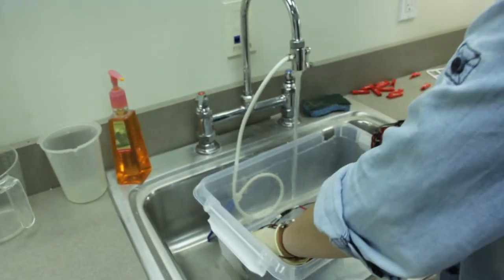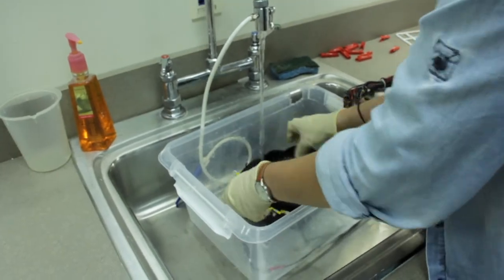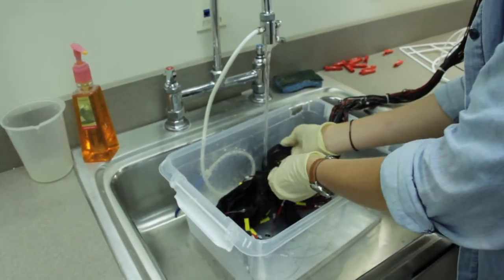After you have waited for 3 minutes, rinse the cap in hot water. Keep the cap in the wash tub during this process.